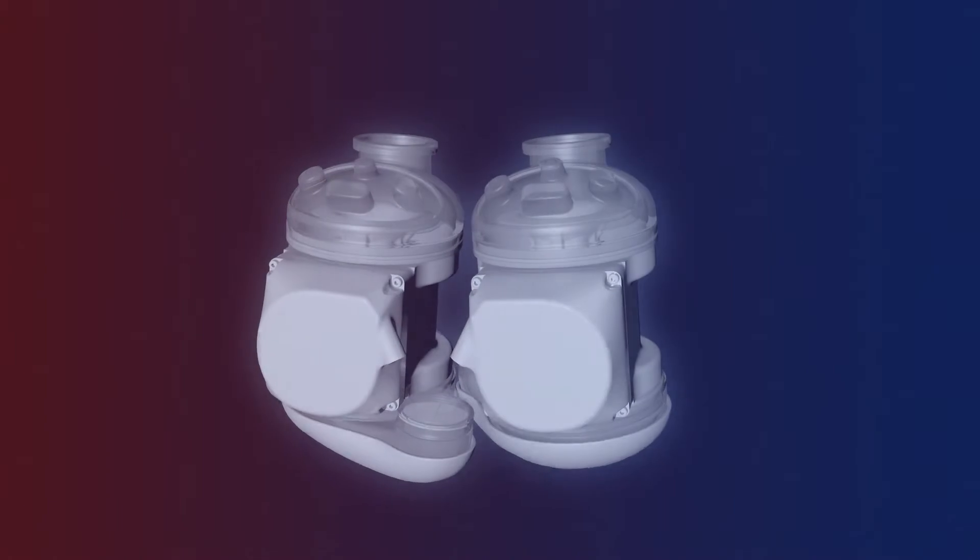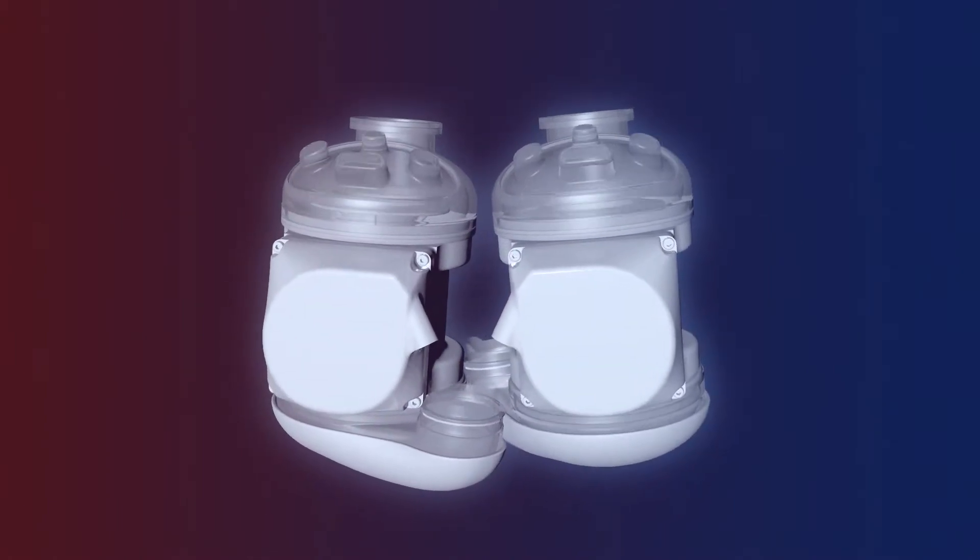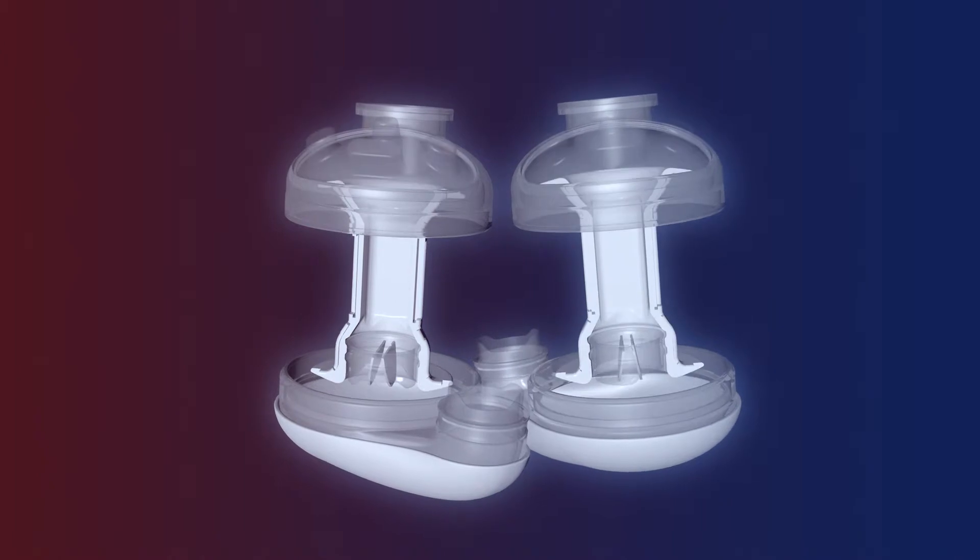Real Heart's product, Real Heart TAH, is designed to imitate the human heart construction and to create a natural flow of blood.